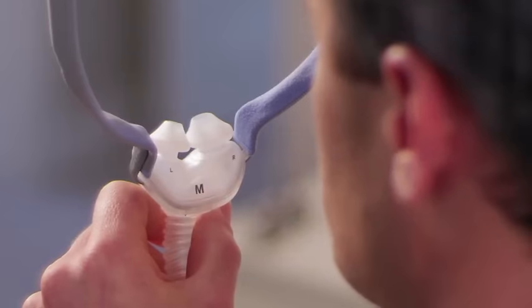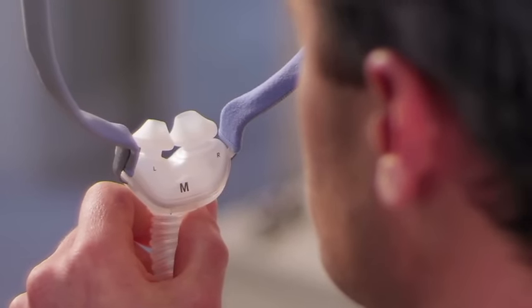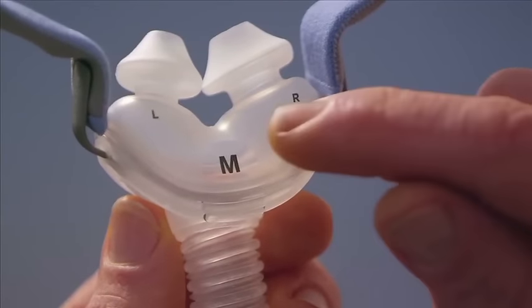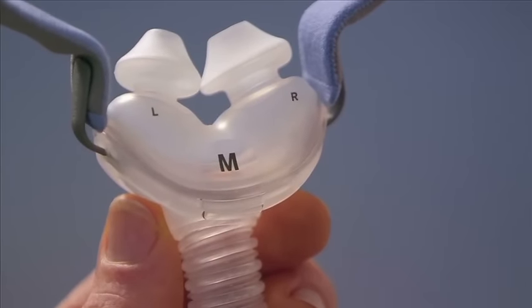You'll see left and right side symbols plus the size at the bottom of the pillows to make it easy to put on correctly. If you run your finger over the sizing window, you'll feel it's shiny, making it easy to check at night.